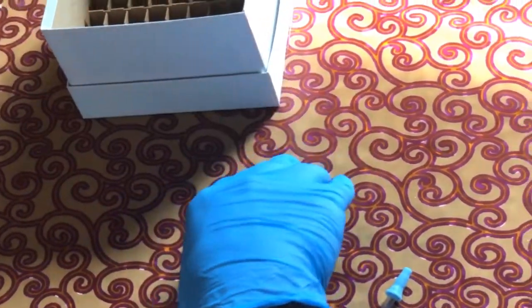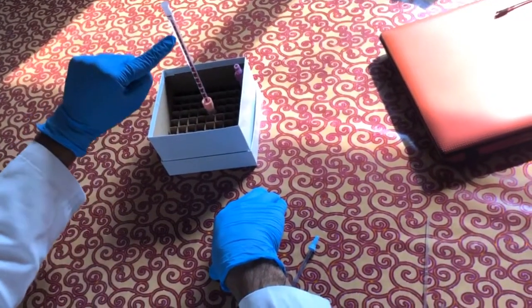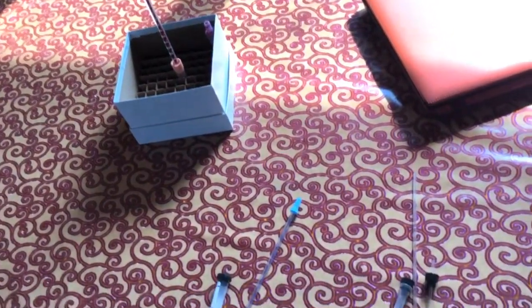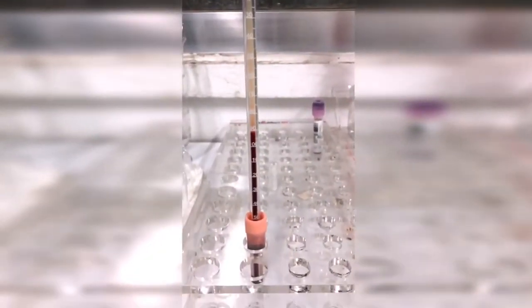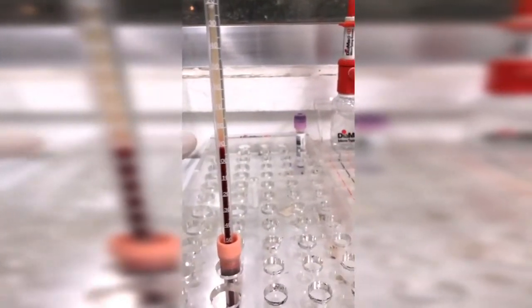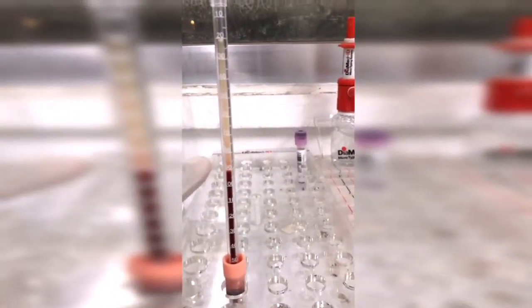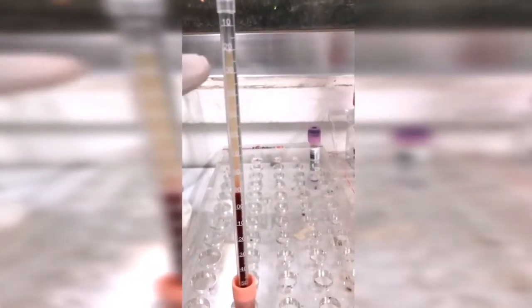And then we will leave it without shaking anywhere in its area, so that we will see the sedimentation after 1 hour. So let us see the result. So as you can see over here, after performing the ESR test, we have seen the result as such. The final sedimentation has stopped at 90, as you can see. But then we also have to remember that the plasma sedimentation has started from 20.